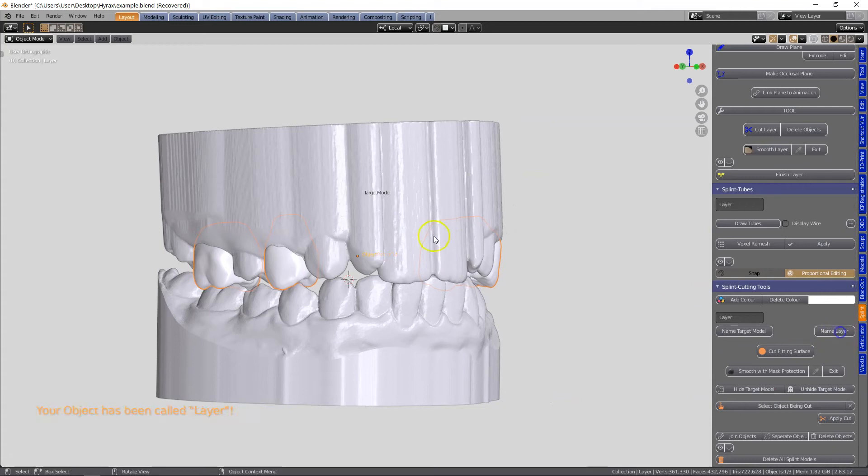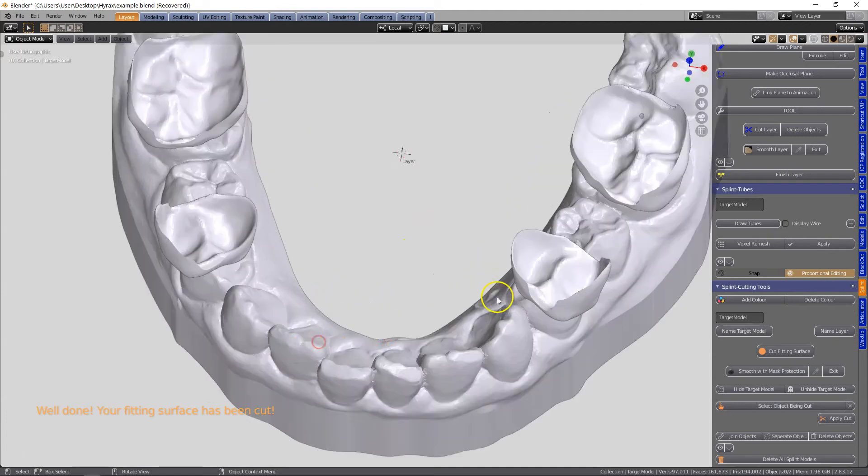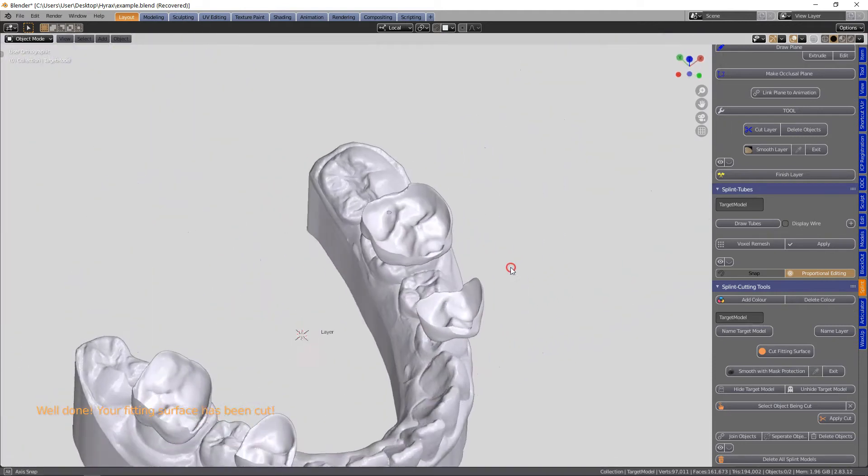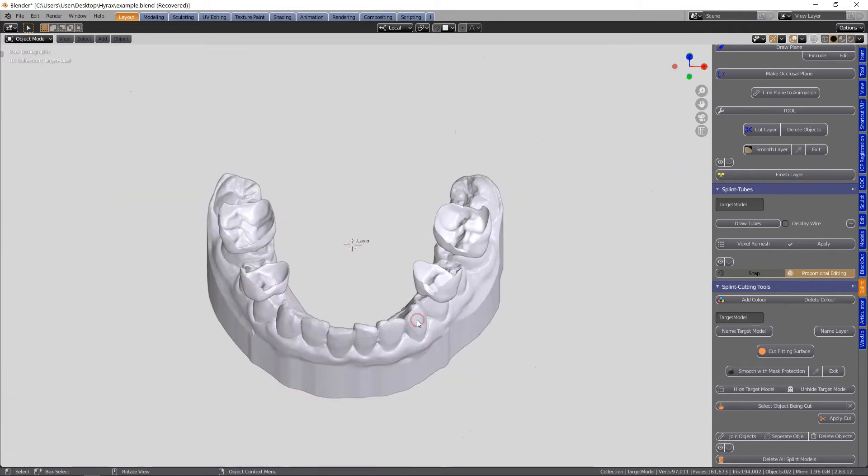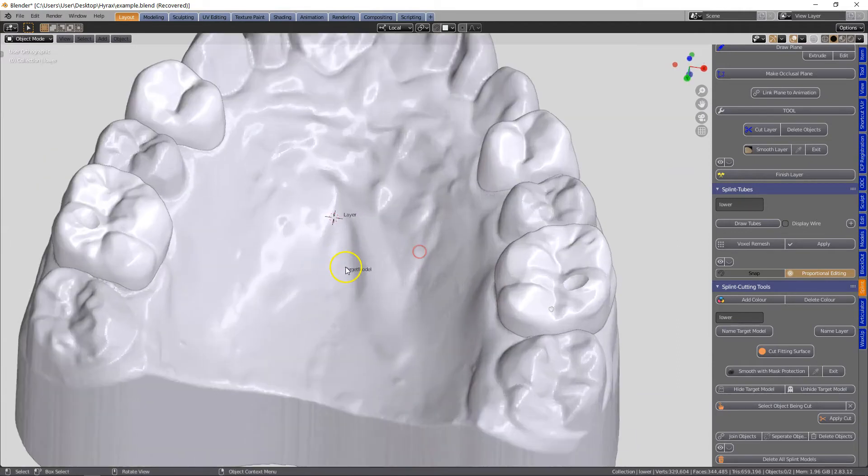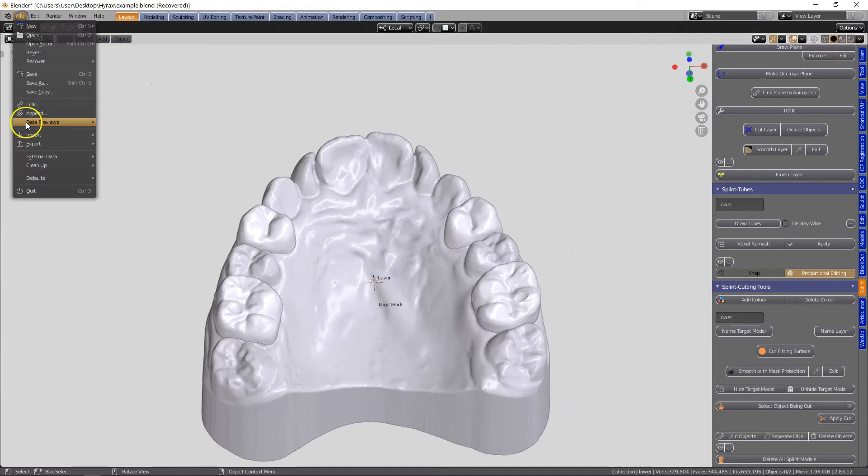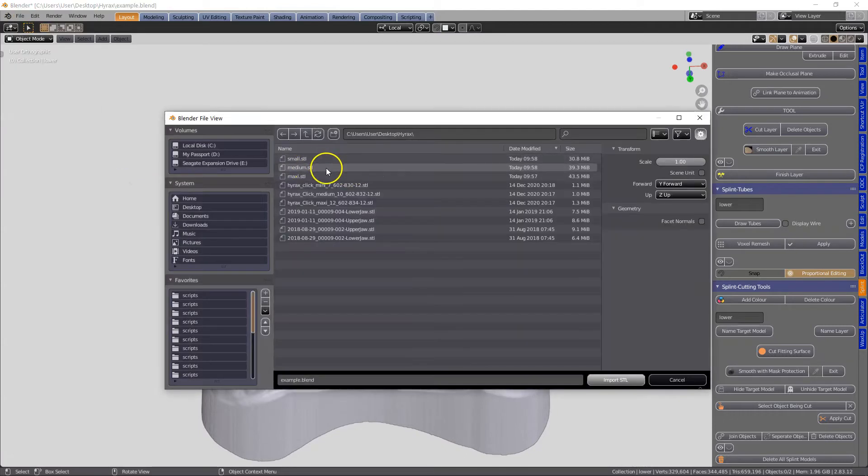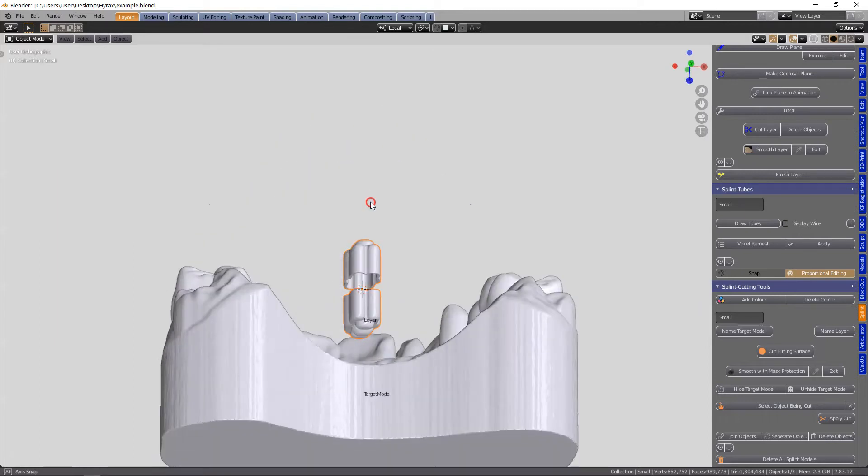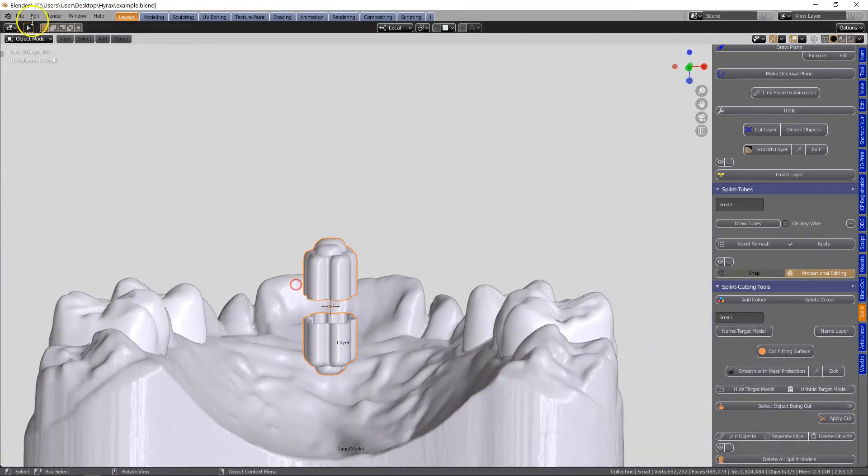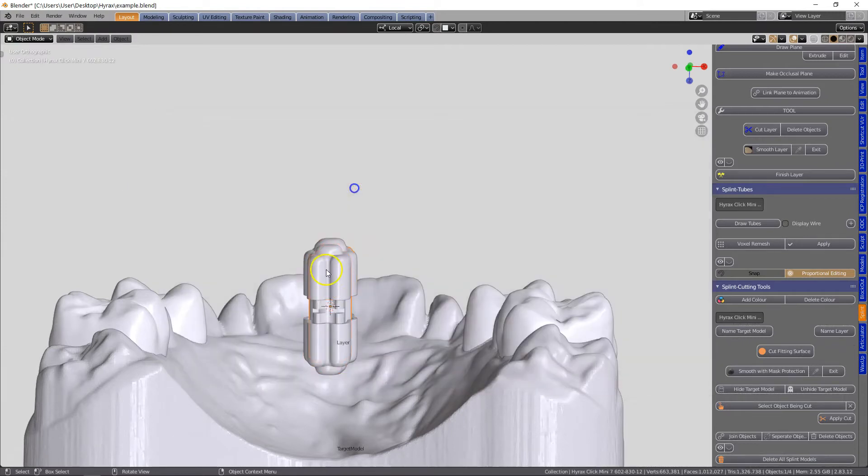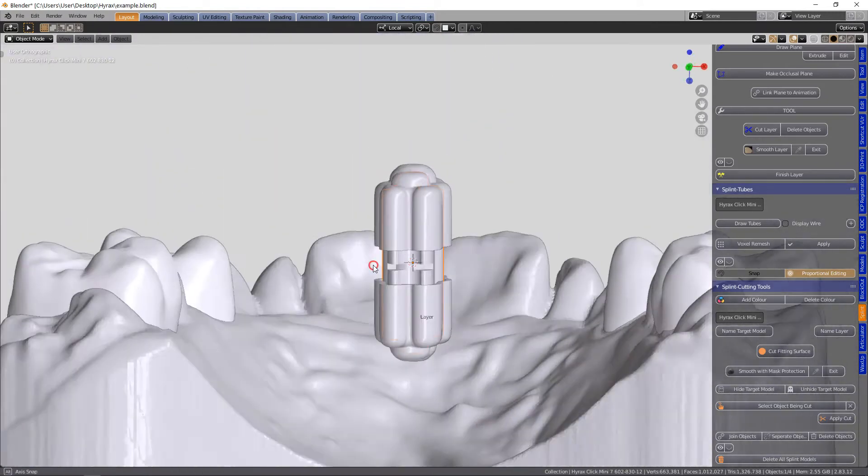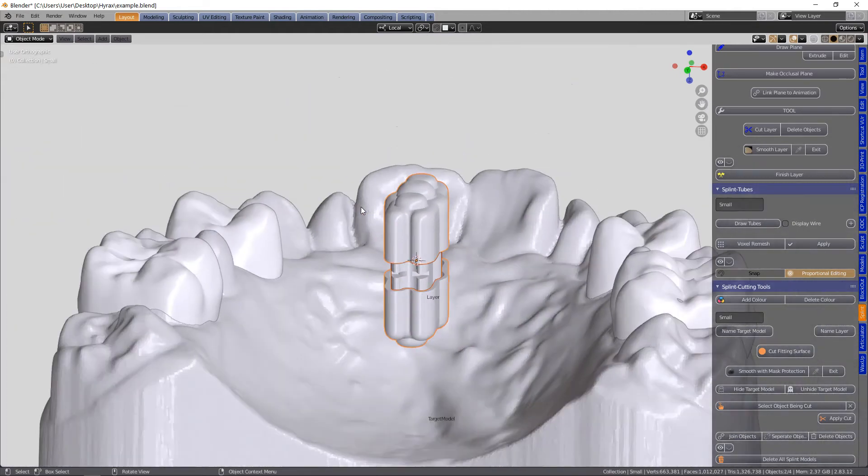Now what we're going to do is go back and in the splint module cut the fitting surface. We can see there's a little hole in one of them. For the purpose of the video I will continue to proceed with the design of the appliance. So this is a housing that I've created - these housings can be found in the freebies section of the website.